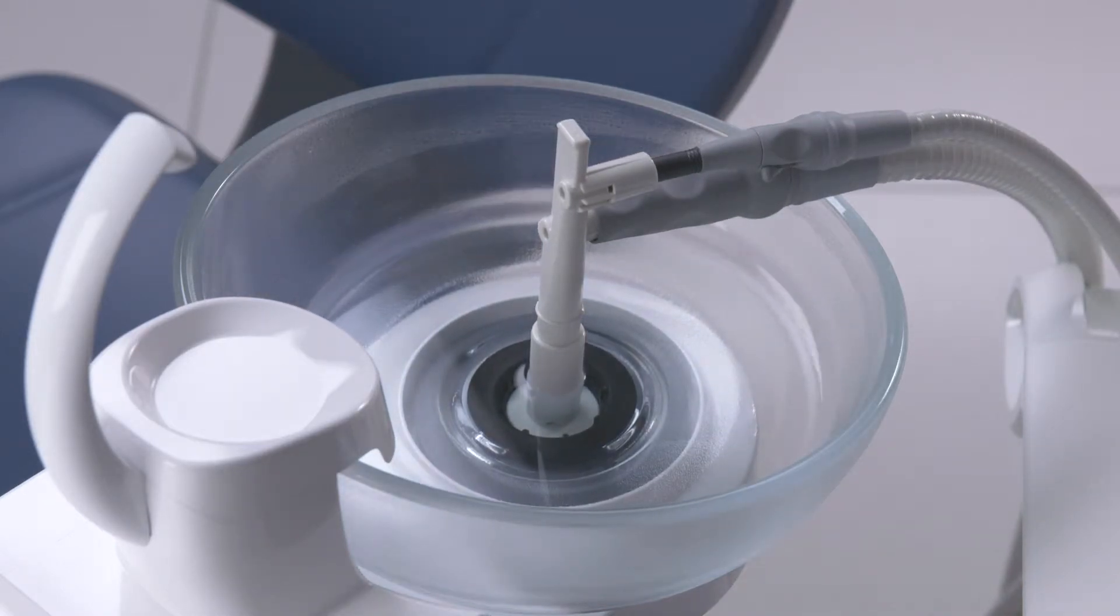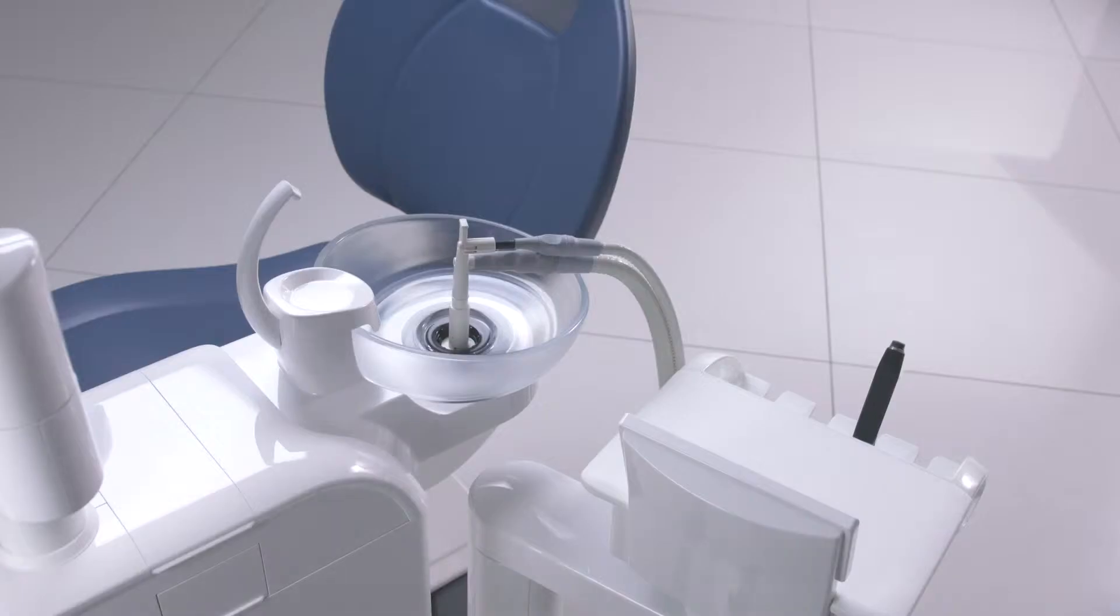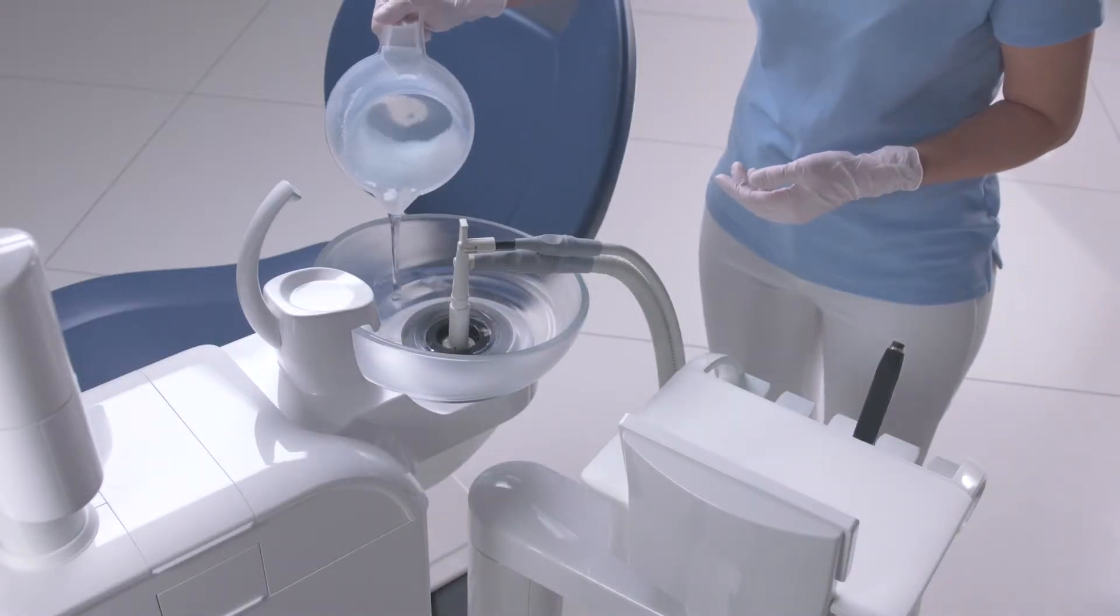Allow the cleaning solution time to work in the unit. Note the manufacturer's instructions in terms of exposure time.